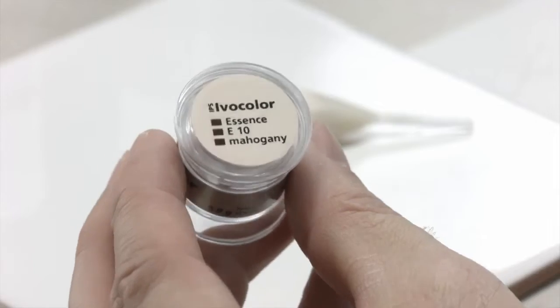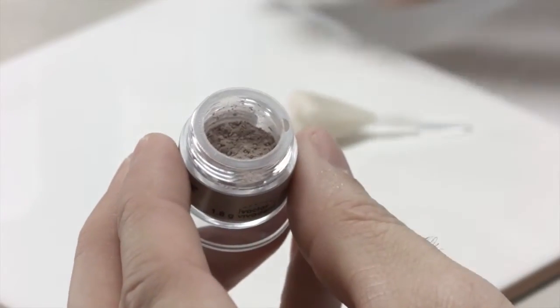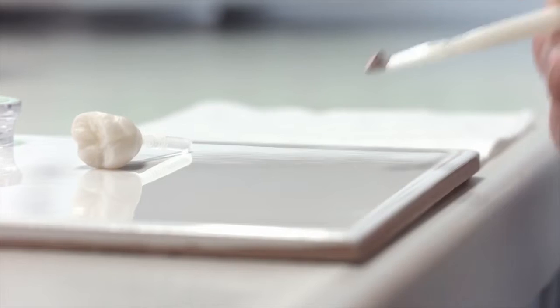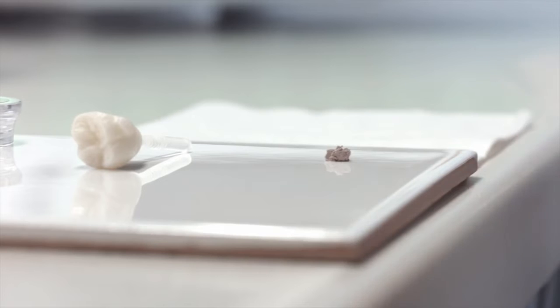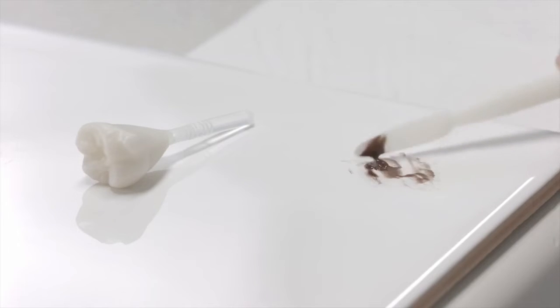Open the container and remove a spatula tip of IPS Ivocolor Essence. In order to create striking effects such as cracks in the enamel surface, stain fissures, or calcium spots on the tooth, it is advisable to mix with IPS Ivocolor Mixing Liquid All-Round or Long Life. When creating a superficial glaze effect, use the IPS Ivocolor Essence Fluid, which you can mix to a paste-like consistency.